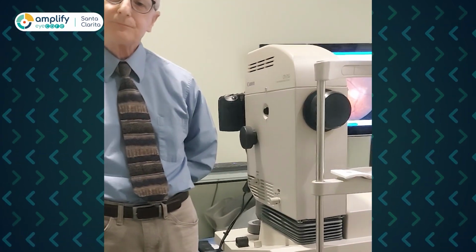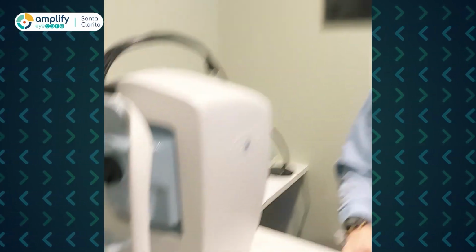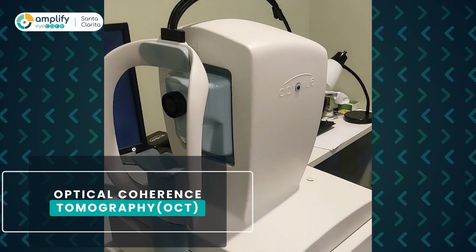So we're with Dr. Garbus here in his practice in Santa Clarita. And one of the things I think that really differentiates him, besides his awesome glasses and demeanor, is his enthusiasm for his toys. Dr. Garbus loves his toys. So Dr. Garbus, this right here is an OCT.